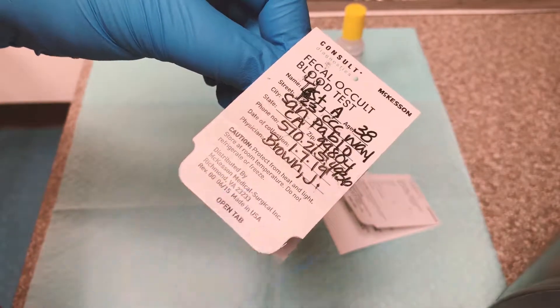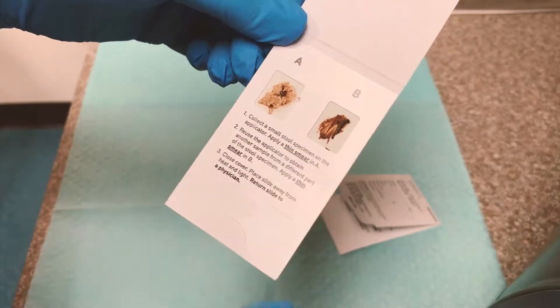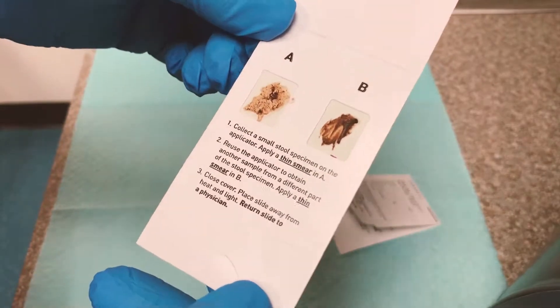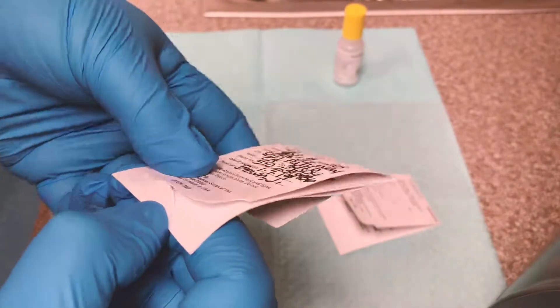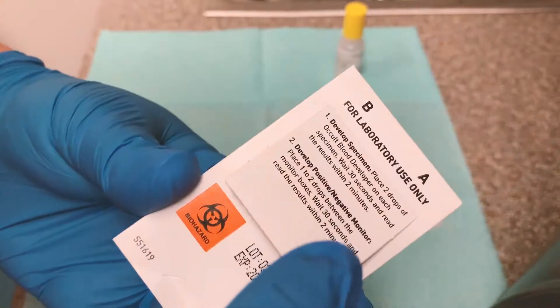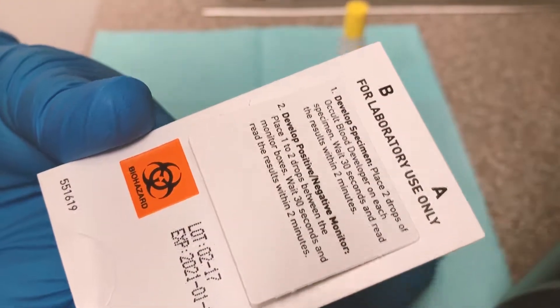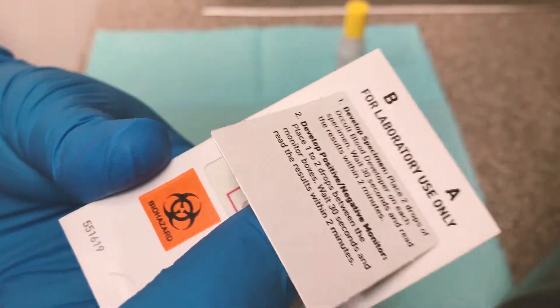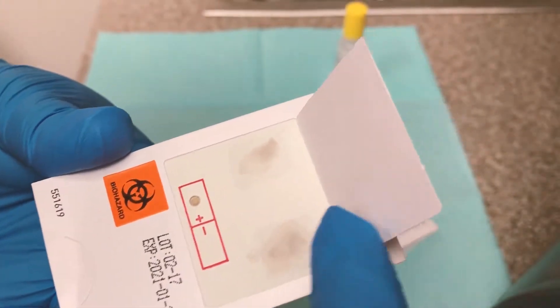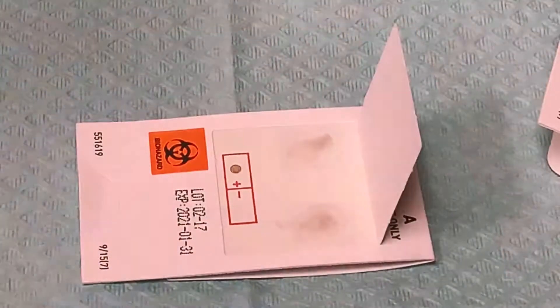Once you get the cards back, you have to make sure the card has all of the appropriate information on it and that there is just a thin smear on the card. Then you want to close the front, and remove the back of the card — the little flip-up window. You can either flip it up or take it all the way off.